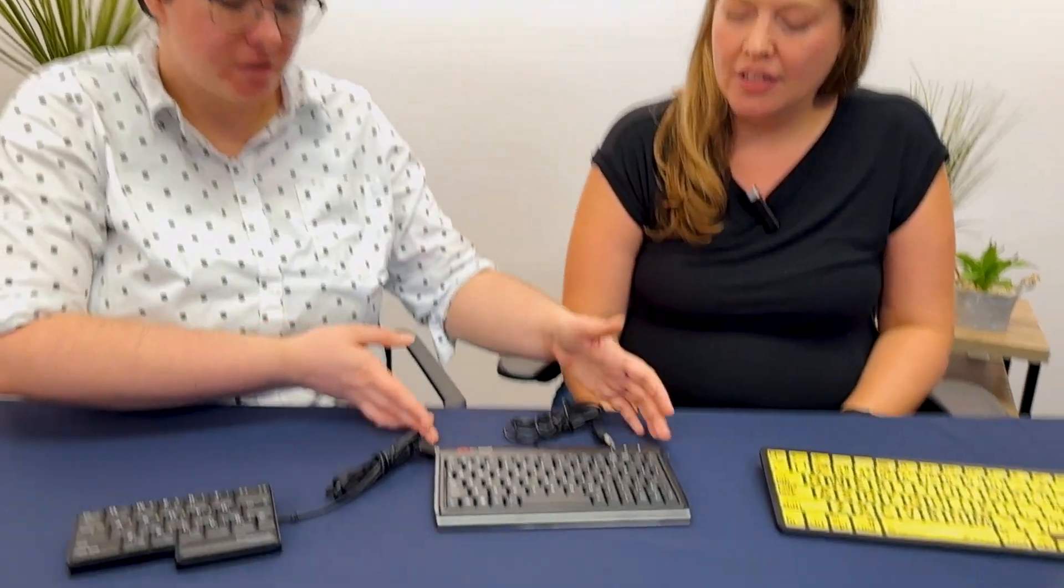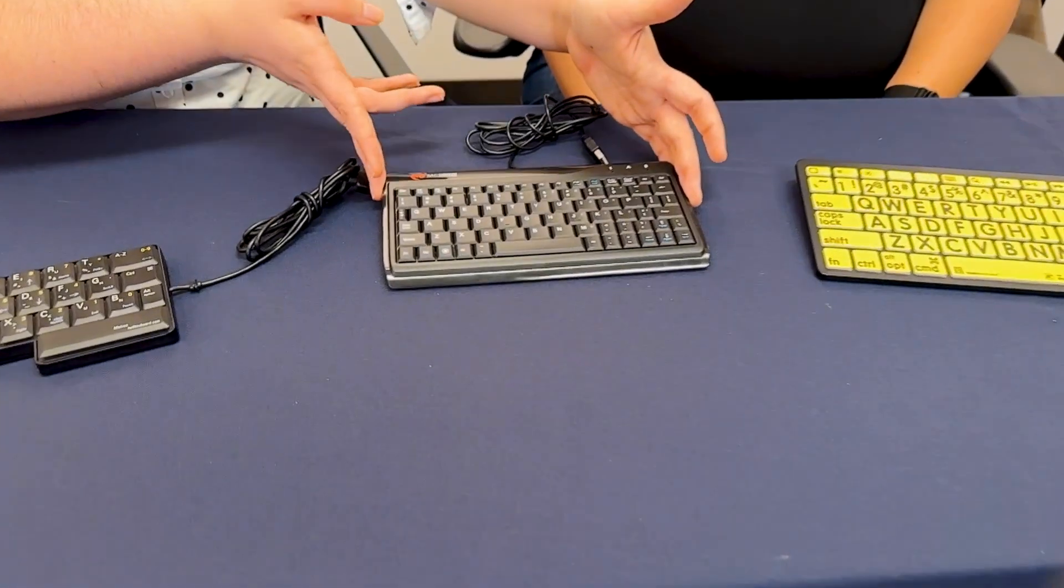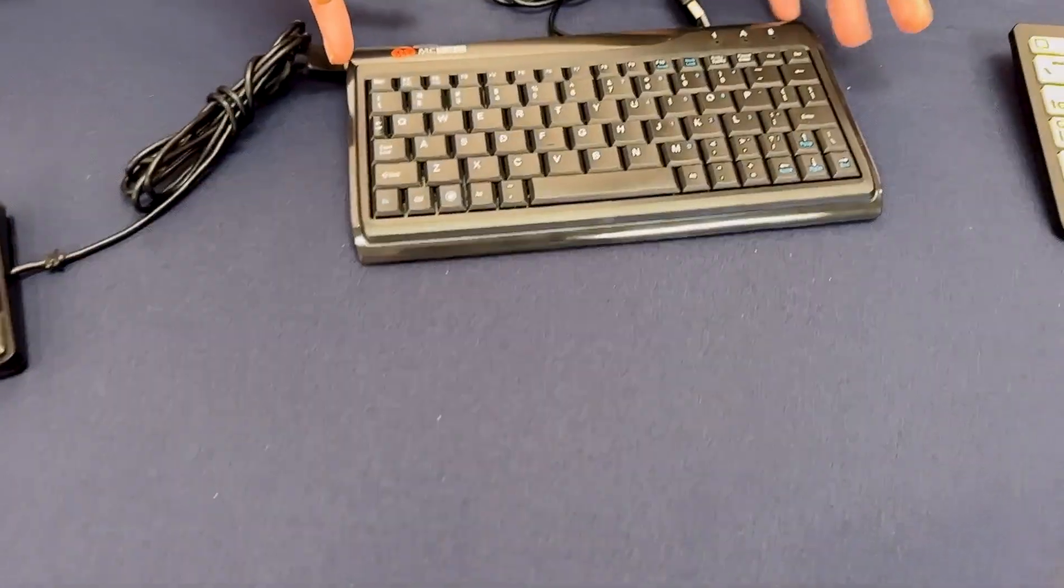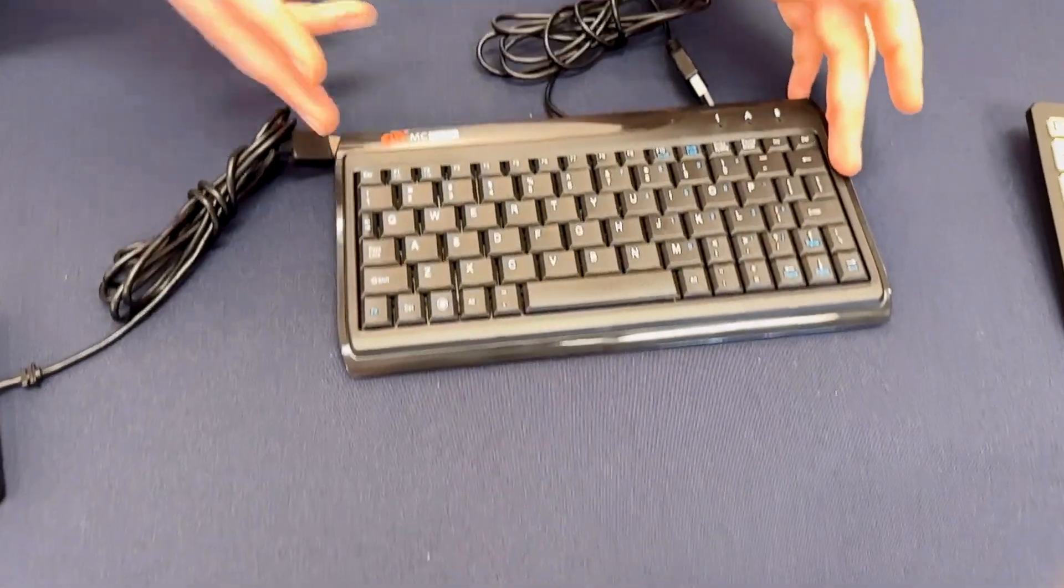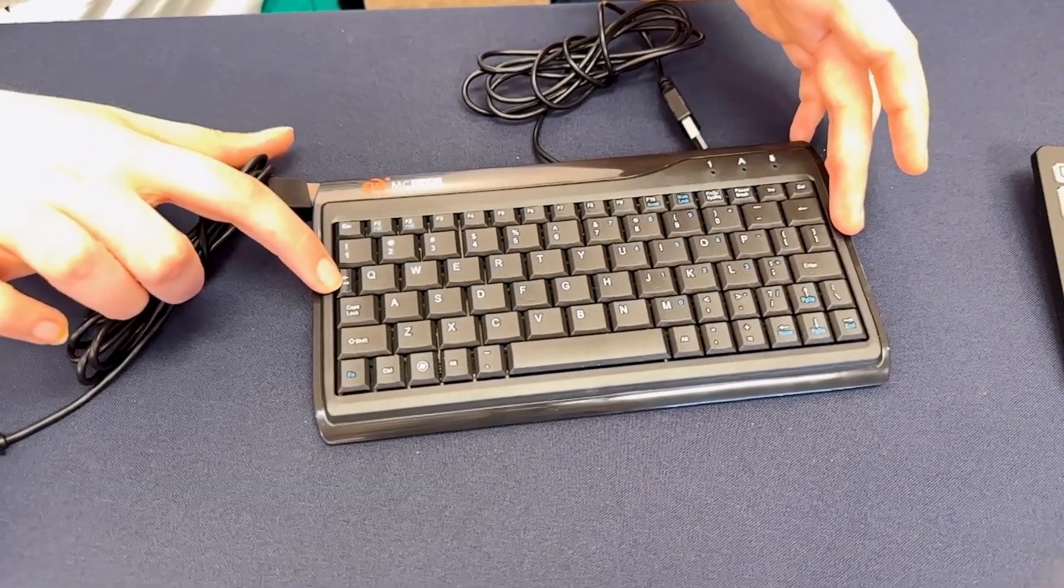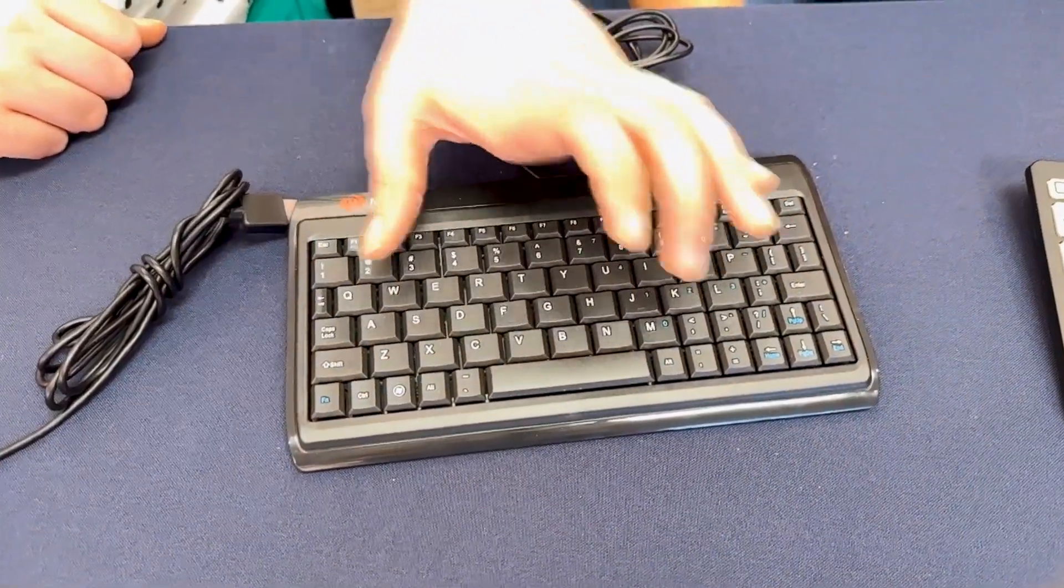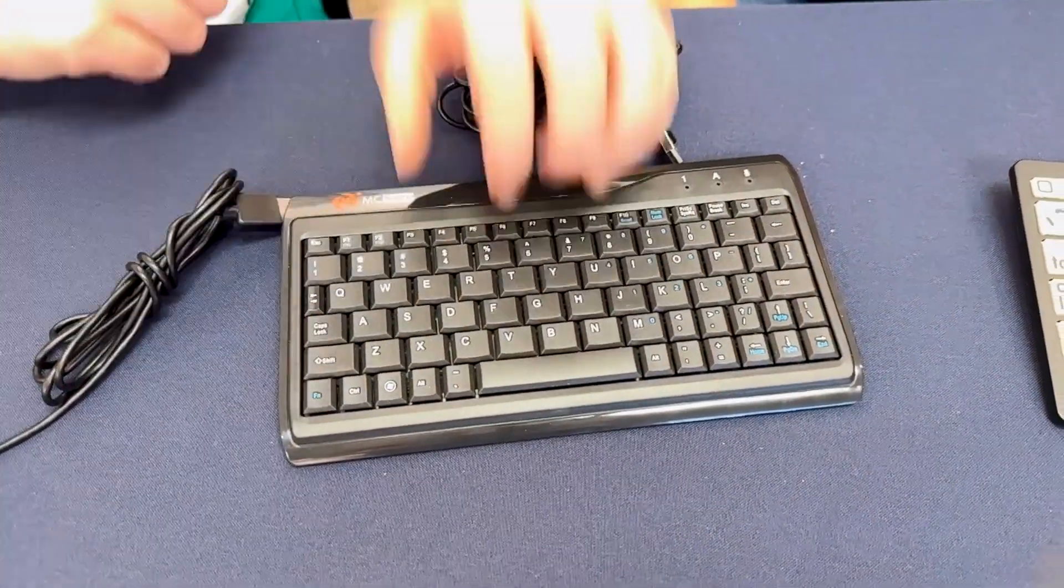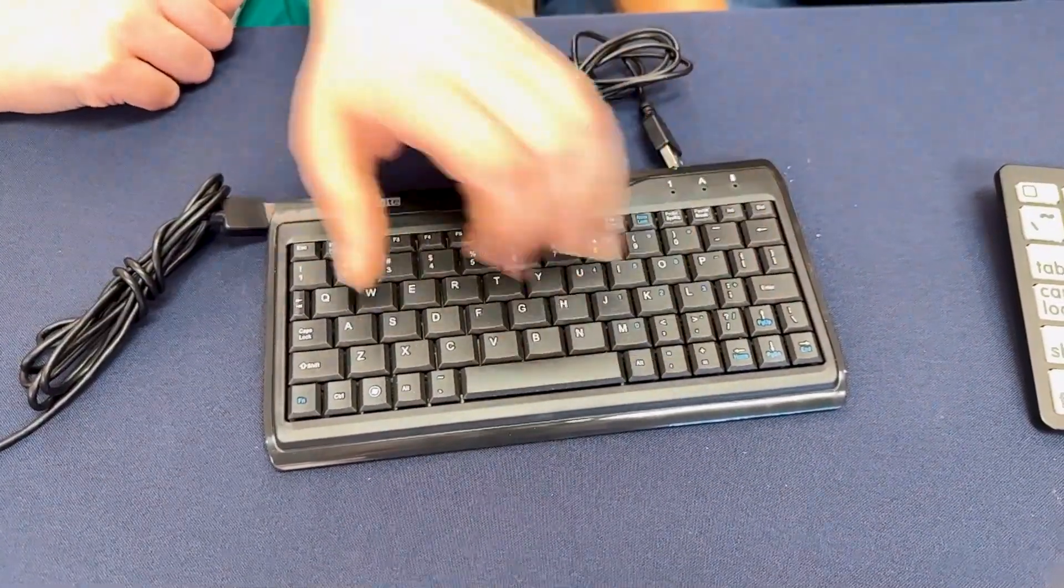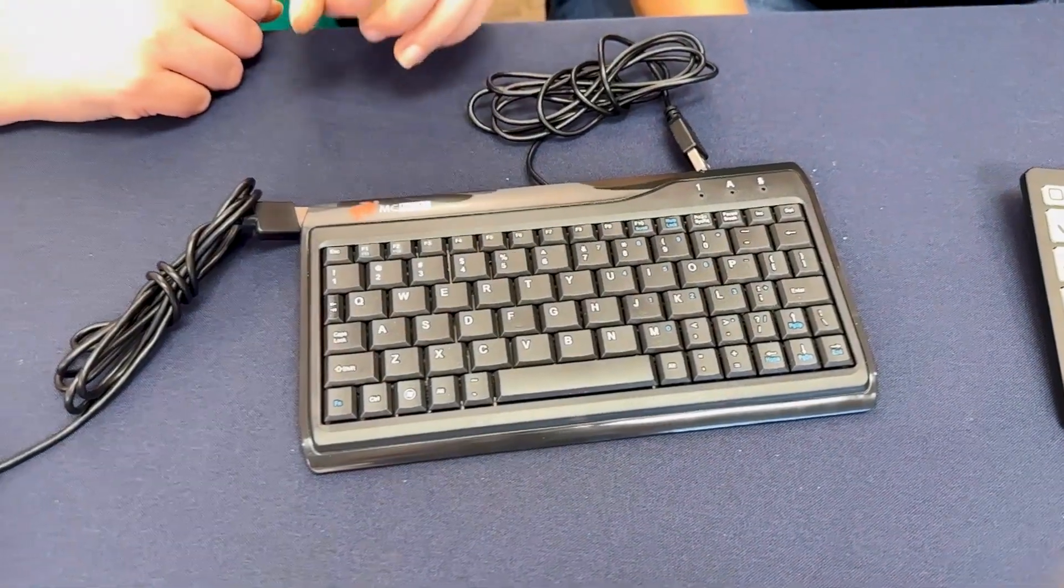This is a mini keyboard. It has all of the basic keys, but some of them are very small so that you can hopefully reach all of the keys with relative ease with either of your hands.